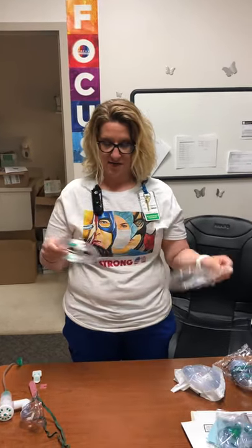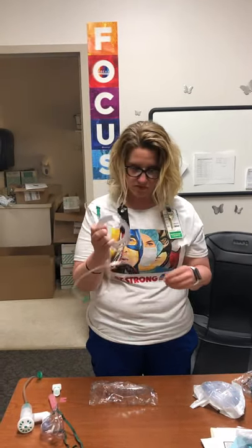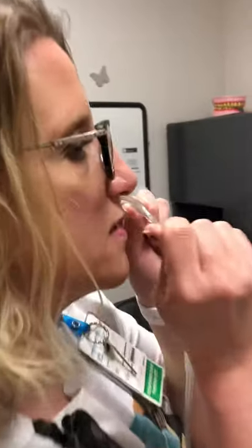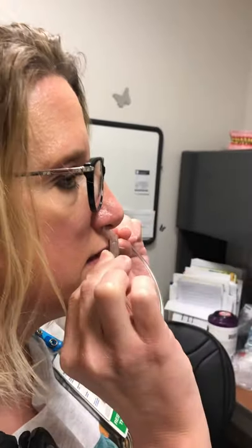I'm sure everyone has seen that before. It goes onto the wall and flows are 0.25 liters up to 6 liters — that's it. Please make sure that the prongs are going downward, so into the nose this way, not this way.